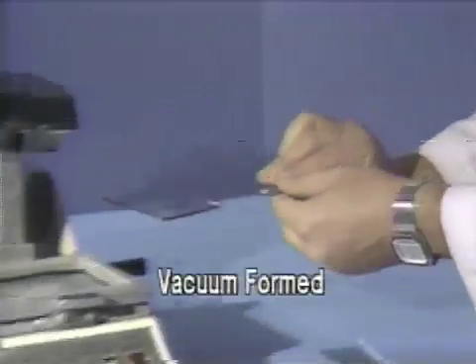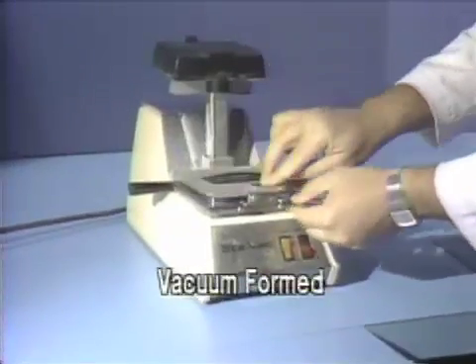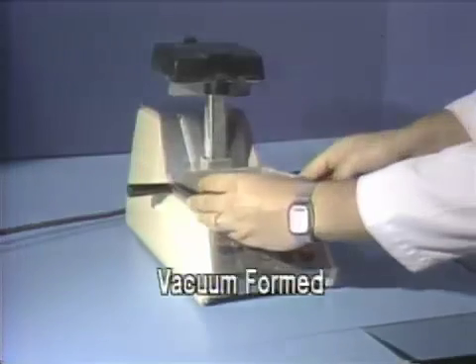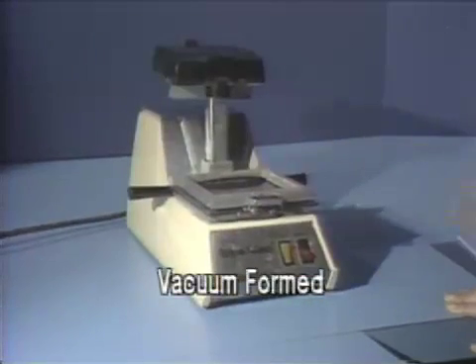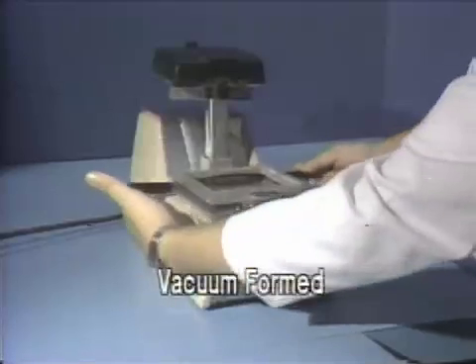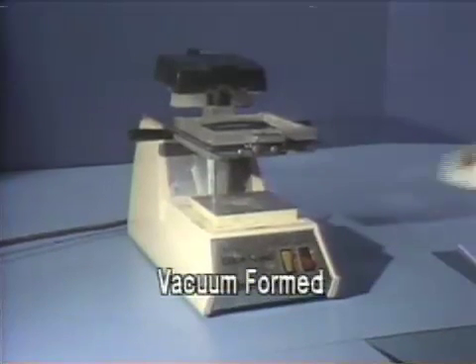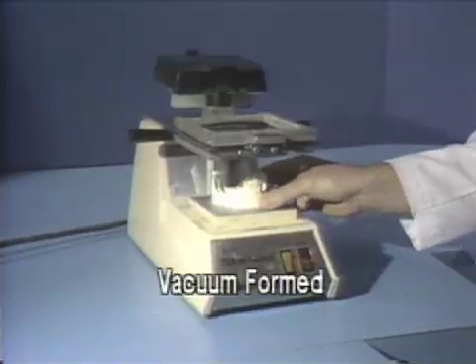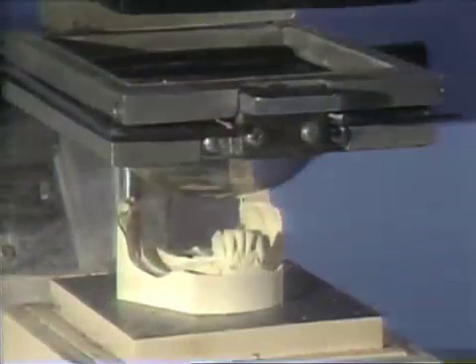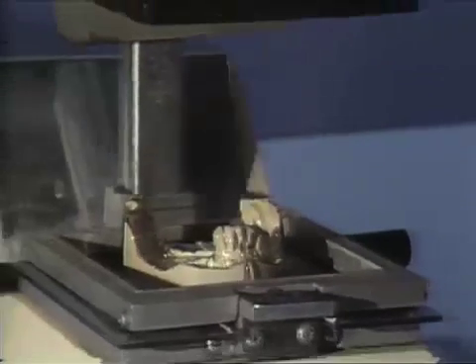A relatively thick thermoplastic sheet of surgical splint material is used to make the matrix. This rigid material thins down when it vacuum forms. In order to maintain rigidity and enable the clinician to transfer information accurately to the mouth, this rigidity is required. As the material heats, it begins to sag. When the sag reaches 2 to 3 inches, it is pulled down on the cast and adapted accurately for optimum surface detail.